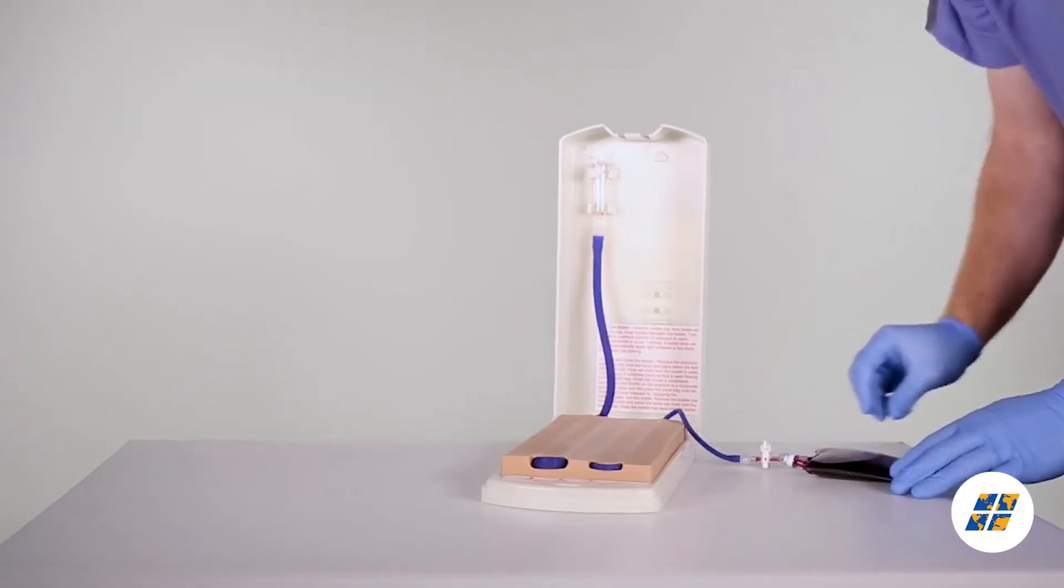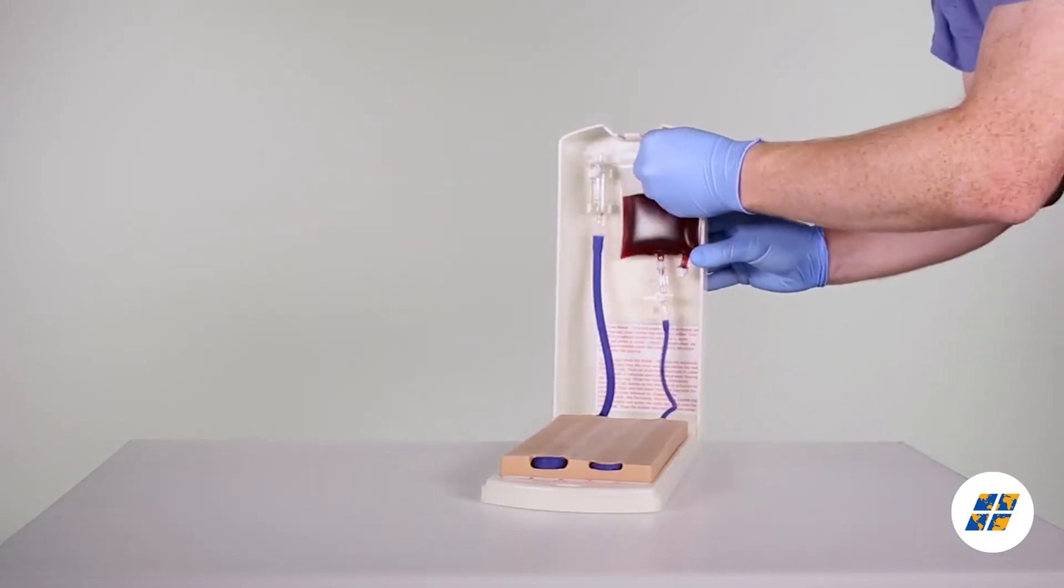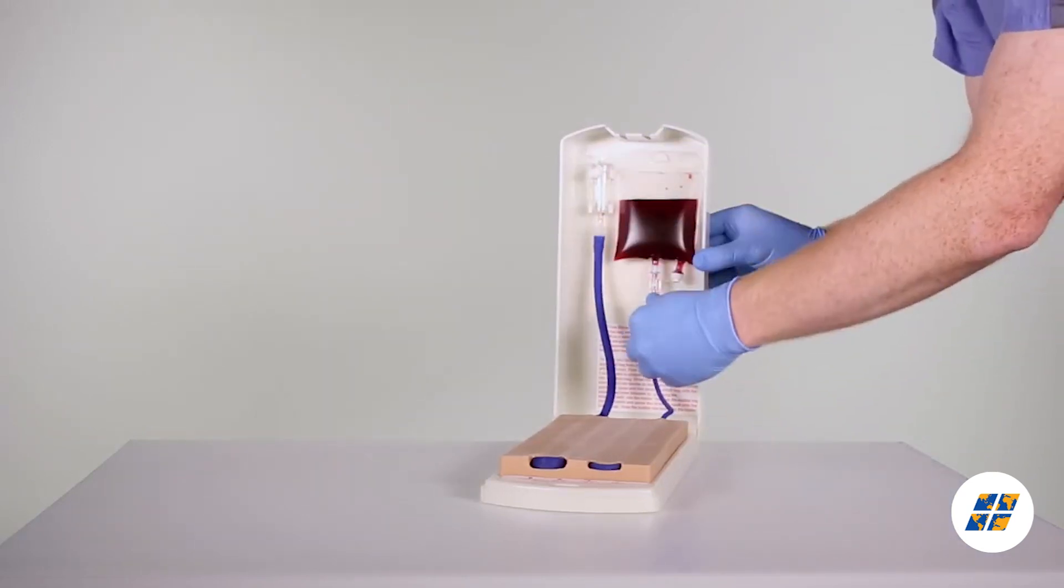This is a model you and your staff need to include in your training tools.